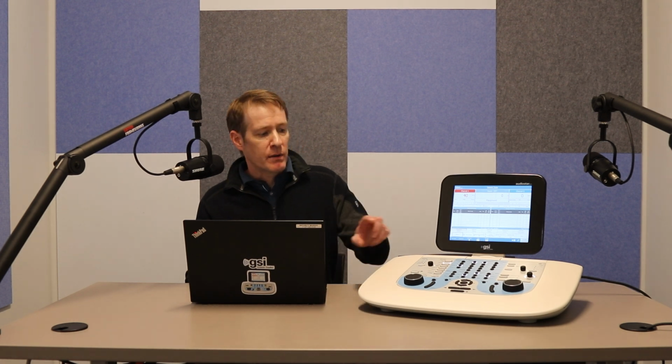Now, there are a couple of other options, including time expire correct, time expire incorrect, and time expire no score. And essentially what you're doing there is when you hit the interrupt button, it's going to play the word, wait a few seconds, mark it either correct or incorrect, or not mark a score at all, depending on what you select, and then it's going to move on to the next word.